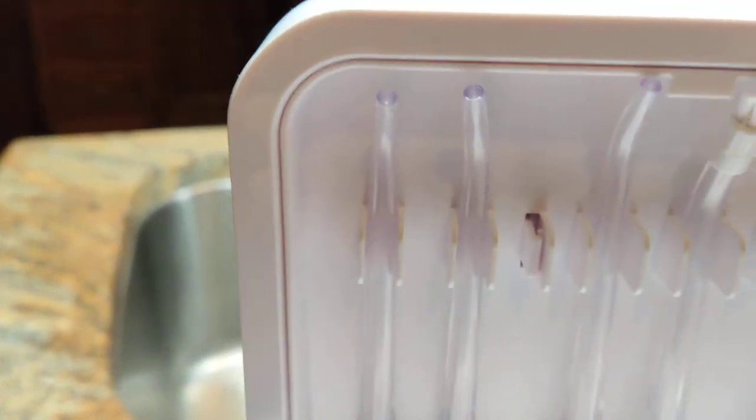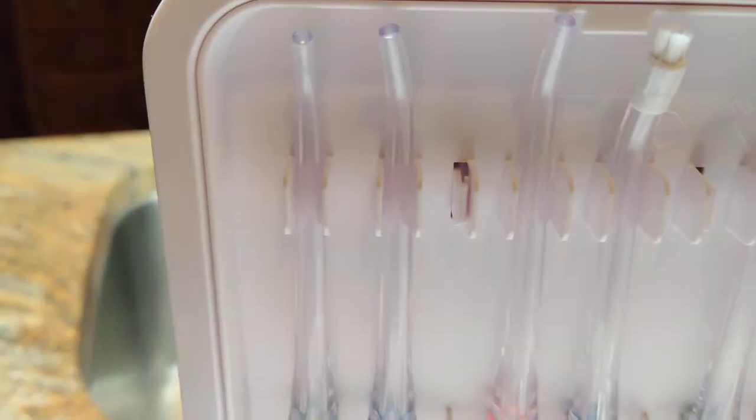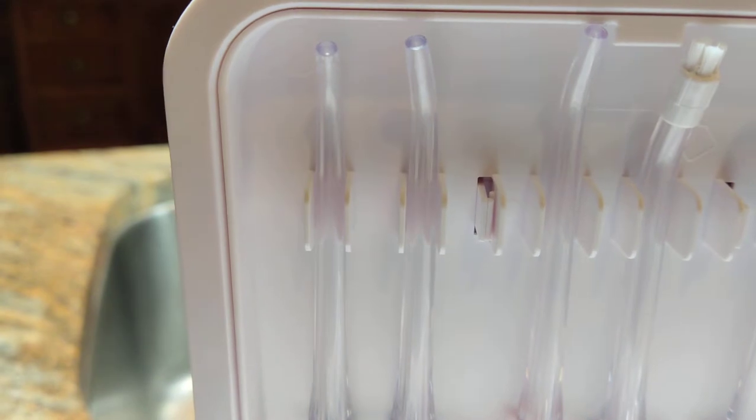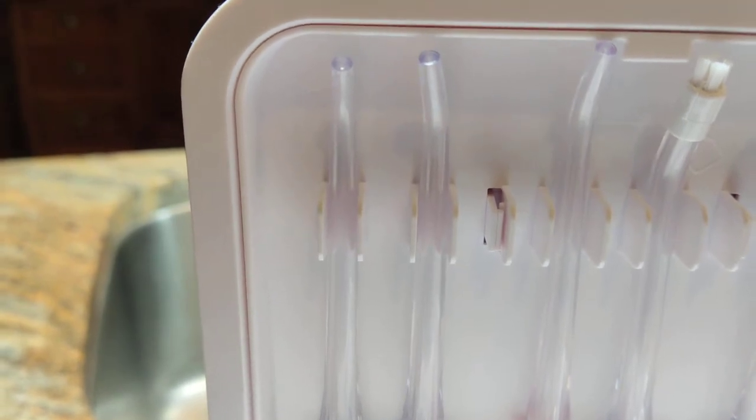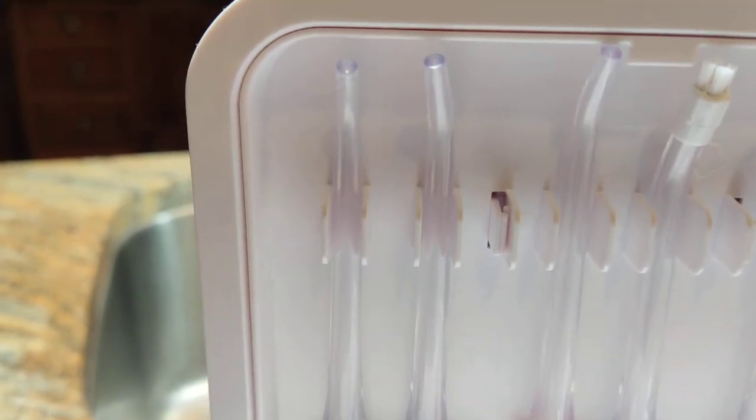You've got a total of four individually colored regular flossing tips so that if you've got four people in your family, each person gets one.